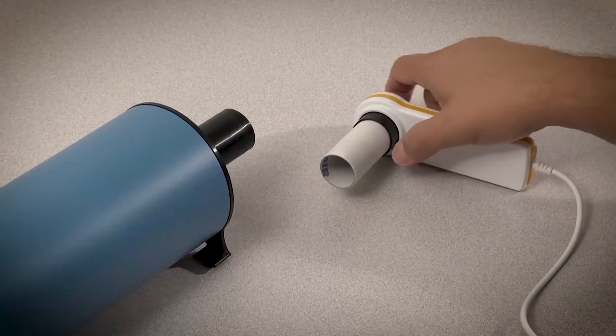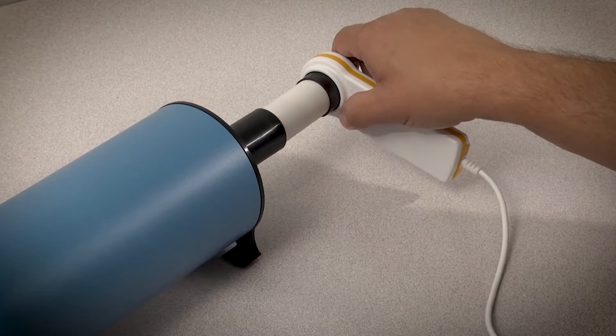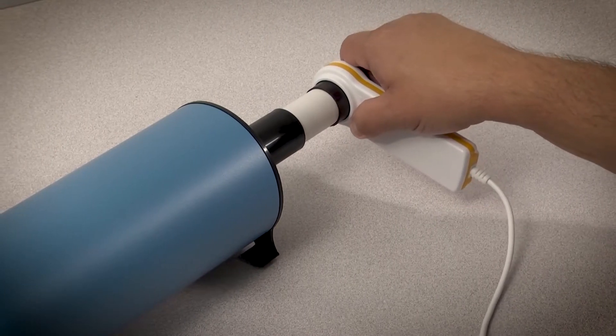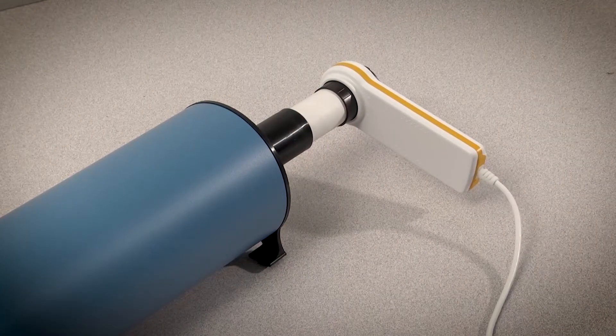Connect the flow meter and the turbine to the 3-liter calibration syringe, making sure you have a tight seal so there are no air leaks.